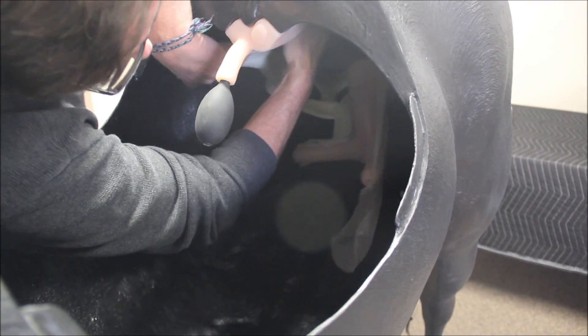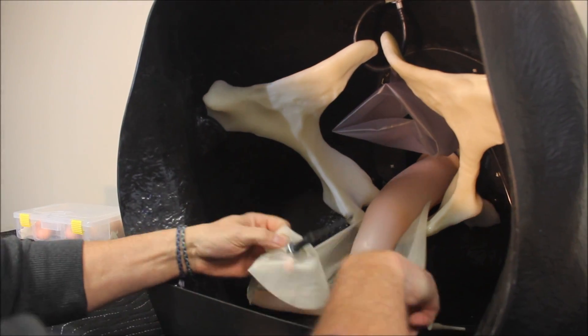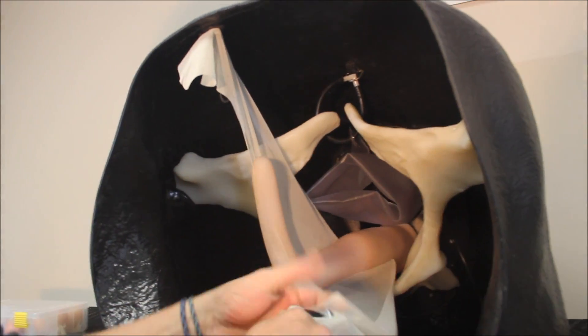The horse has a replica plastic pelvis that sits in the dedicated mounts and has one Phillips screw in the base of the pelvic floor. The magnets attached to the broad ligament connect with those located in the body wall to suspend the uterus.